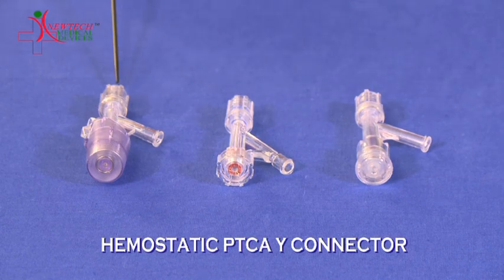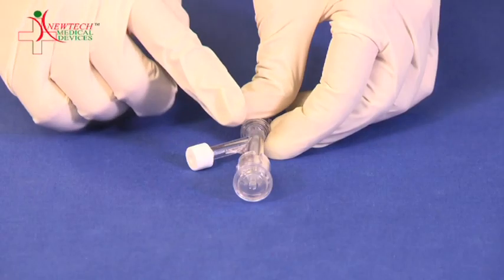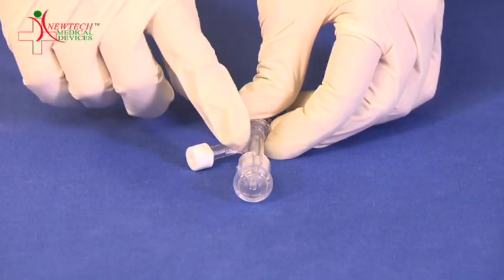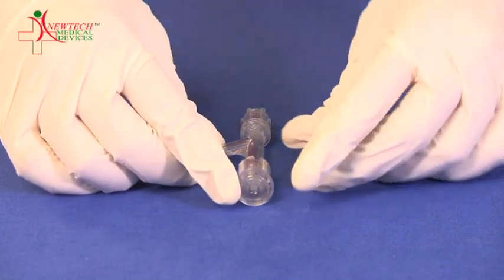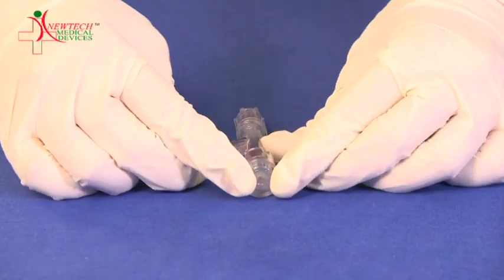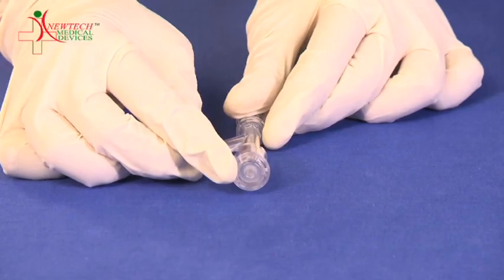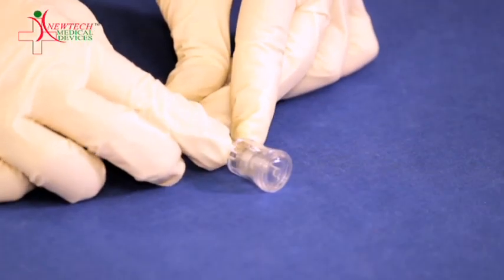The first type of connector is connected to the guiding catheter. When it is pushed, the opening gets open, and once it is pulled, the opening gets closed.